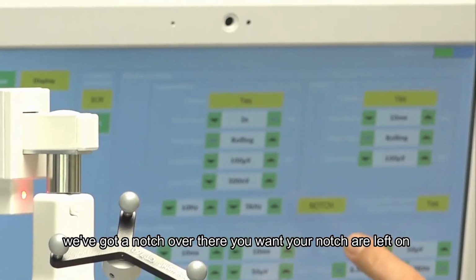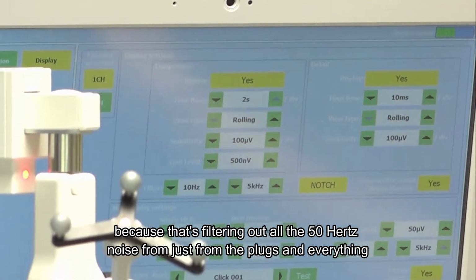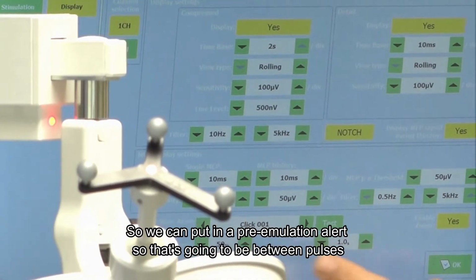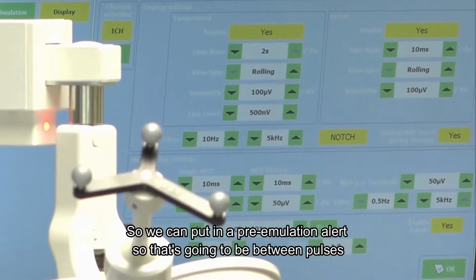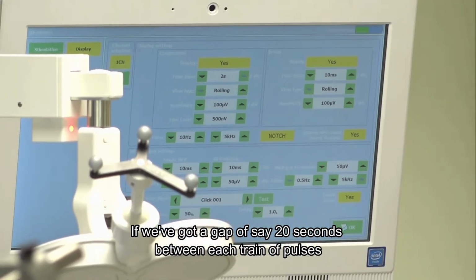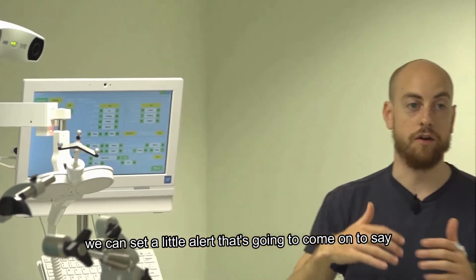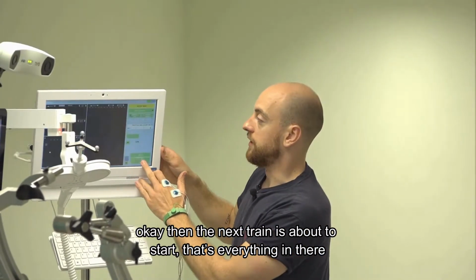We've got a notch filter there. You want your notch filter left on because that's filtering out all the 50 hertz noise just from the plugs and everything. And then we can see there we've got a click, so we can put in a pre-stimulation alert. That's going to be between pulses. If we've got a gap of, say, 20 seconds between each train of pulses, we can set a little alert that's going to come on to say, okay, the next train is about to start. So that's everything in there.